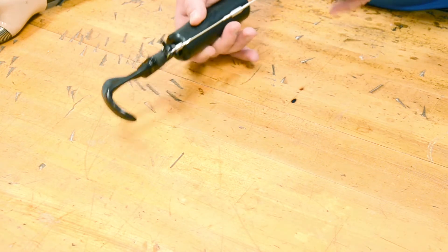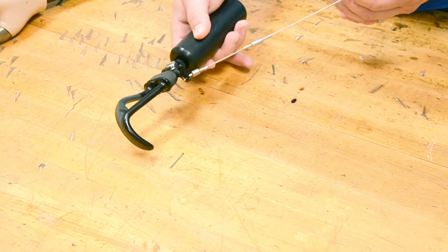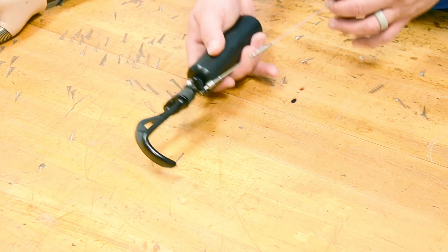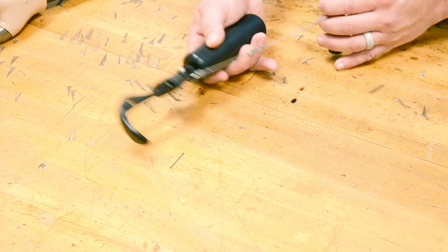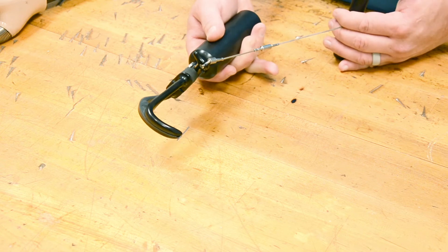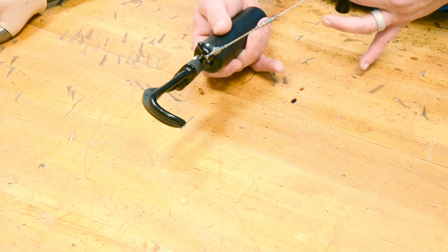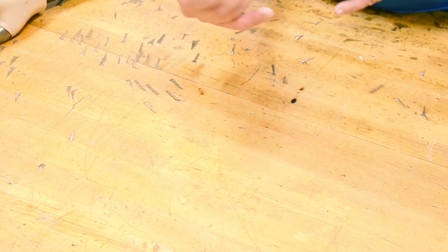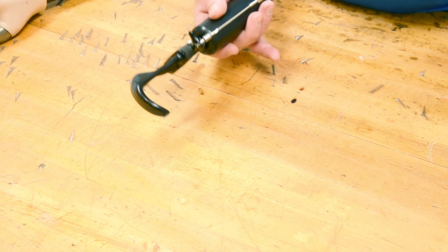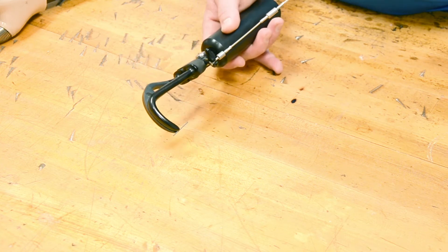The other option is this hook — this is a 5XA black. With a hook, it's extremely lightweight, very efficient, and I can see straight through it, so I don't have to wonder what's going on underneath. When I come at it from the side, which is how the 5X-type hook is designed, I can see clearly through it, know that I've picked up an object, and manipulate it however I want. This is why most patients, especially those who've been around for a while, tend to choose hooks over hands.